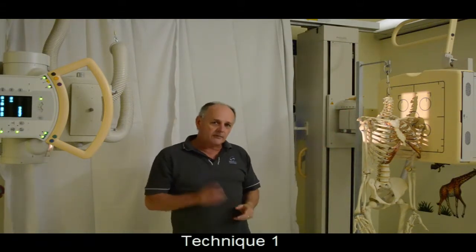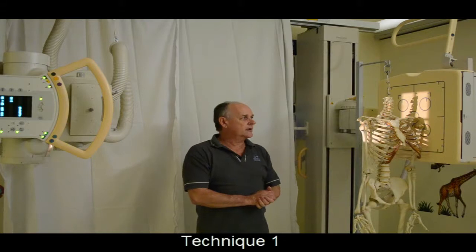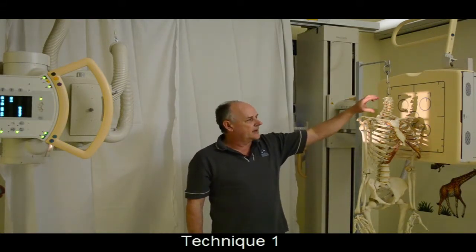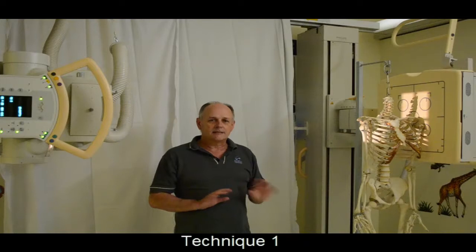That will not change, and that was the important thing that we were trying to achieve. The oblique rays that are coming up in the upper cervical spine are exactly the same. The only difference is the collimation.